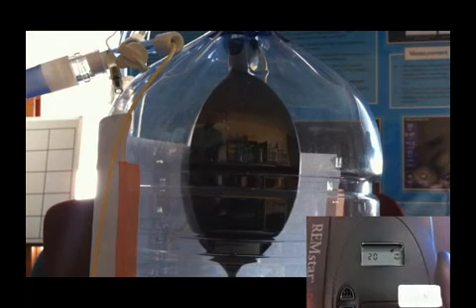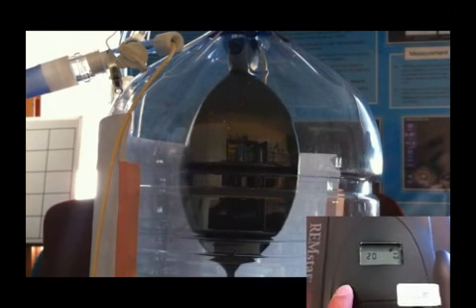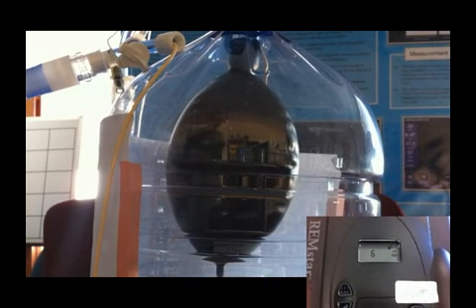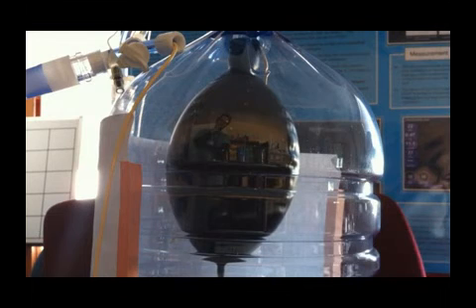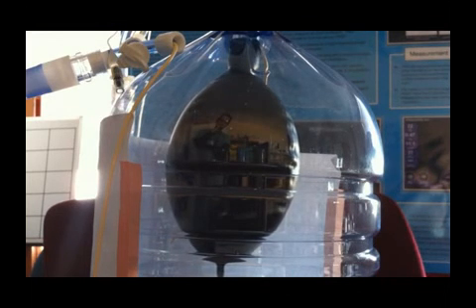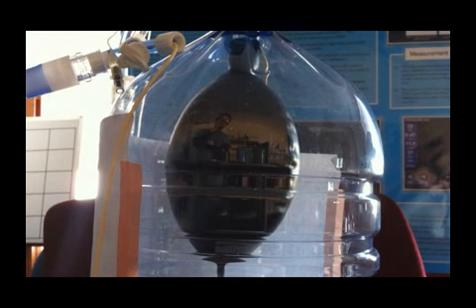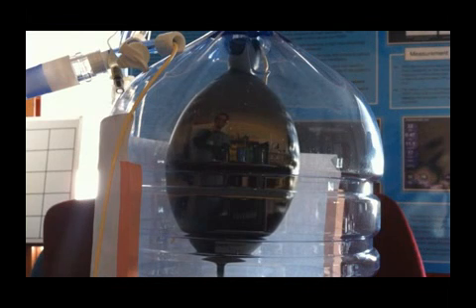For my last scenario, observe the lung when my PEEP is set to 20 cm of water inside my lung and my pleural pressure outside the lung is low at 6 cm of water. The lung is now very over-distended. This would result in poor lung compliance, most likely poor gas exchange, lung damage, and potential hemodynamic instability.